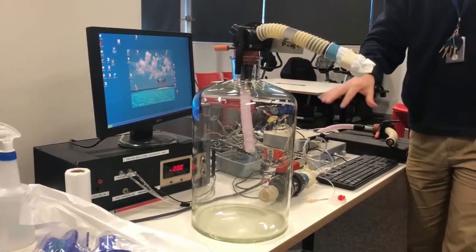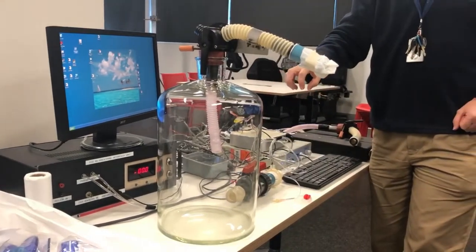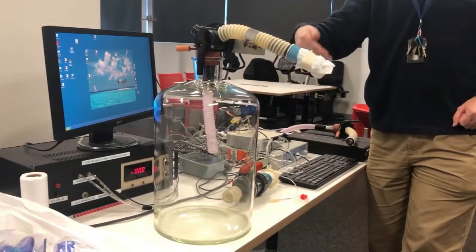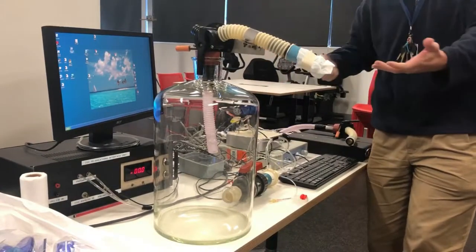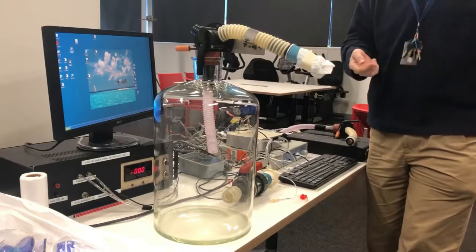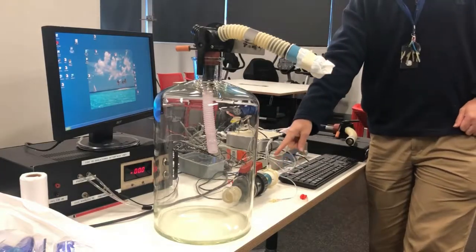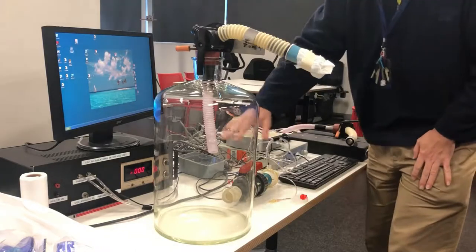That's something I'd like to have the ability to calibrate, because we check that it's reading three liters in the other spirometry parts, but we never have for this and I'm sure it's not accurate at all.